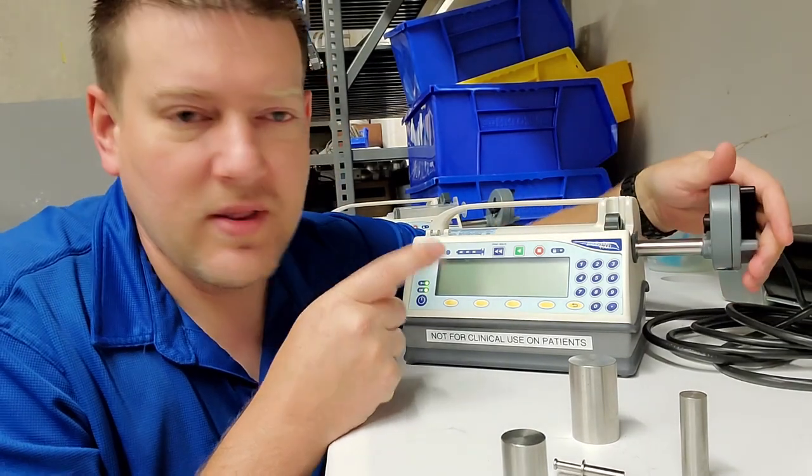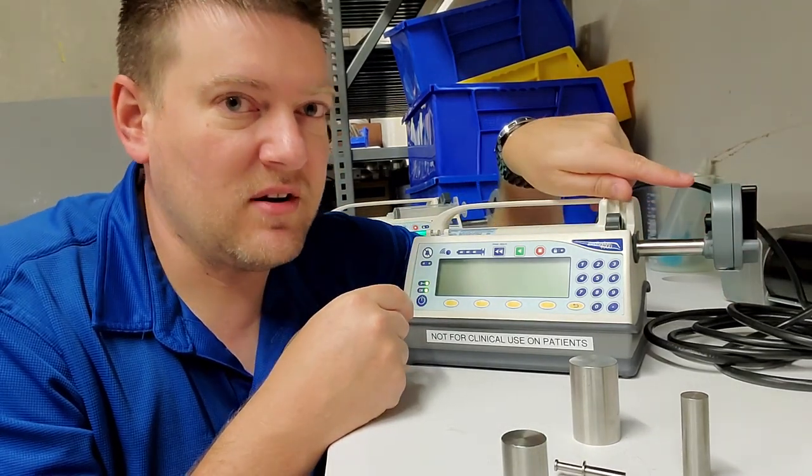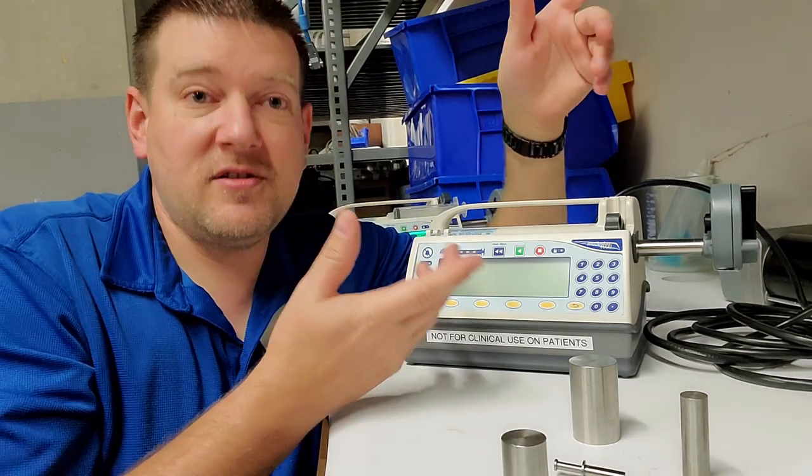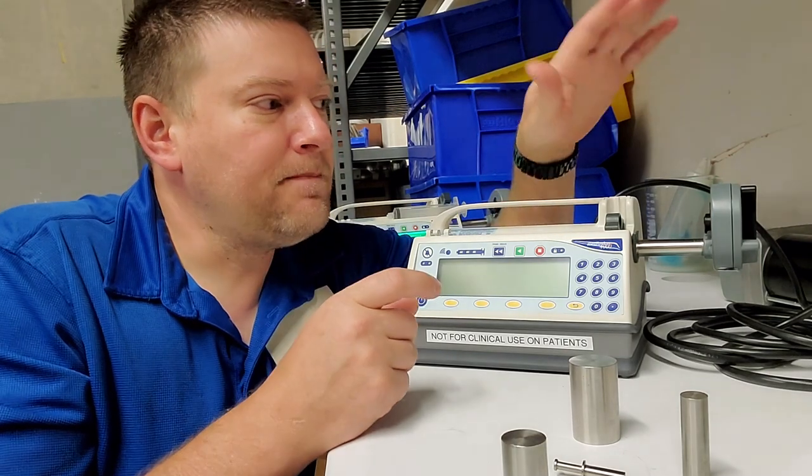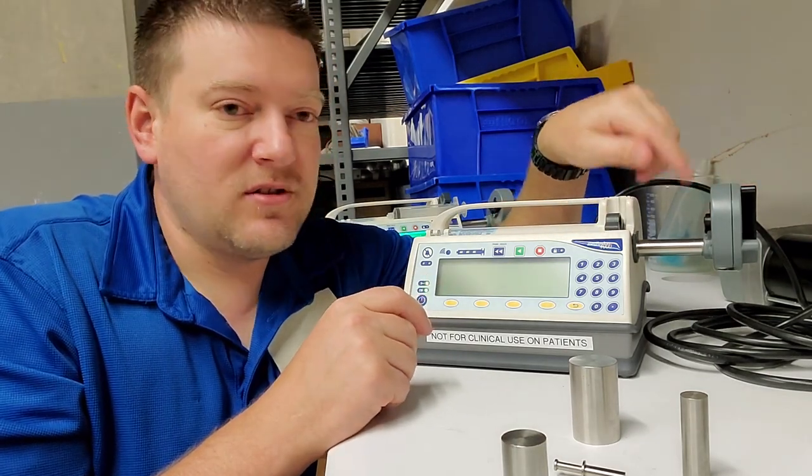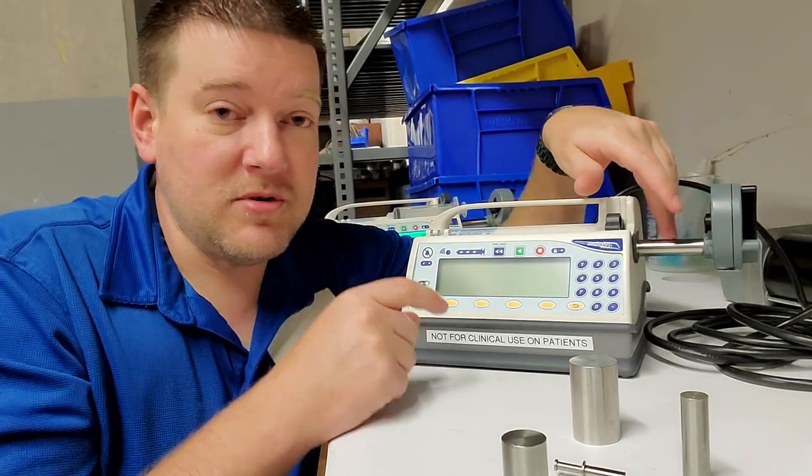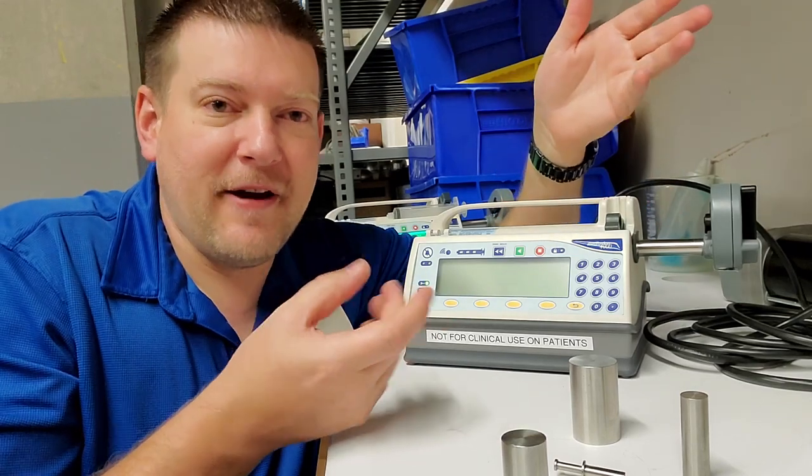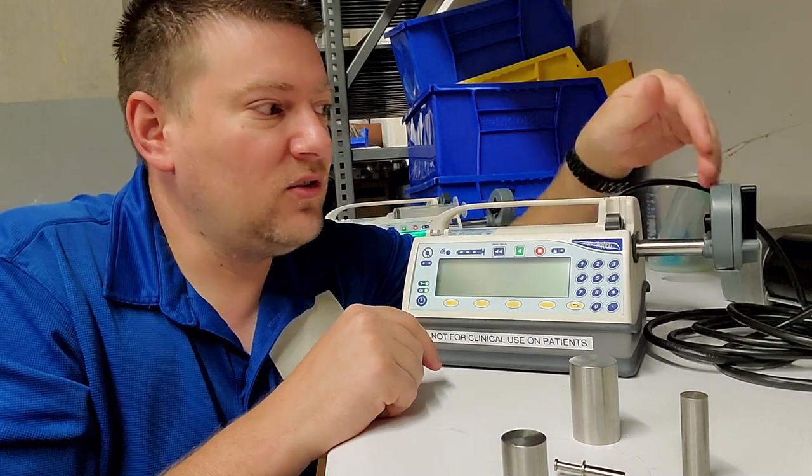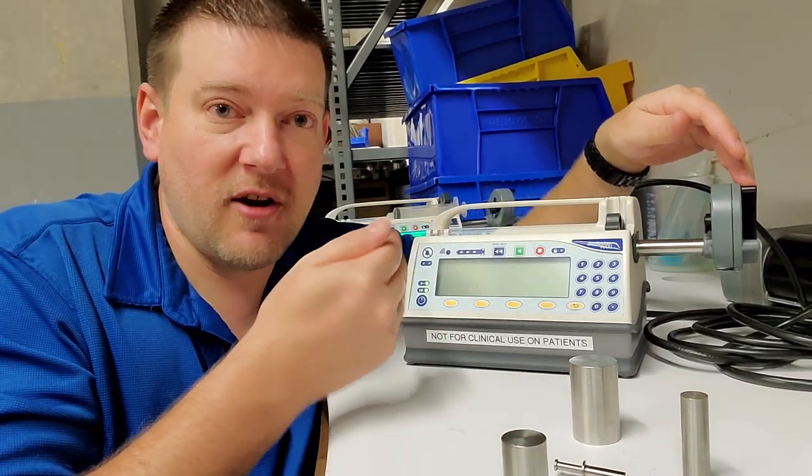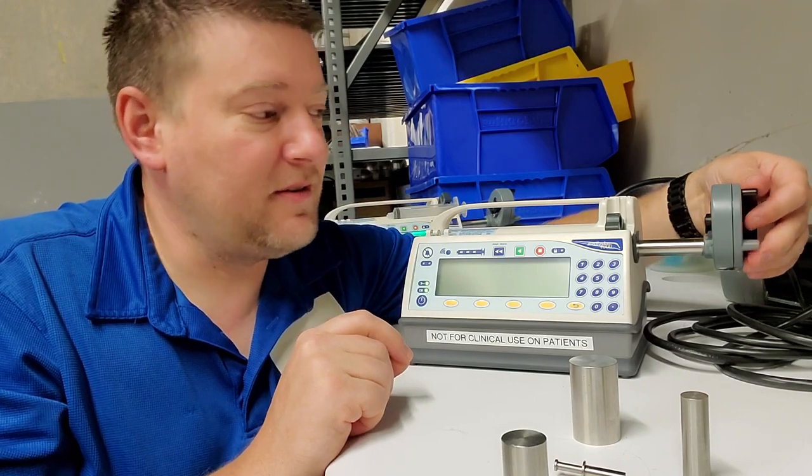I'm pretty sure this works with a worm drive gear in there, probably with a servo motor. It's counting how many revolutions, and since it's a servo motor attached to a worm drive, it's a very specific amount of revolutions for movement - say 20 revolutions per inch of movement. It's going to be extremely specific.